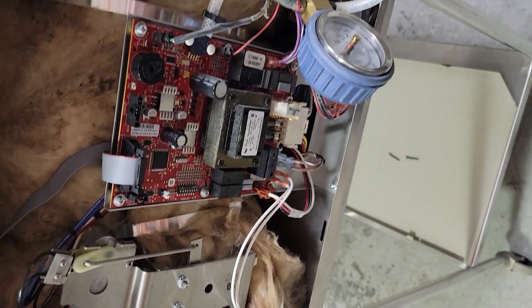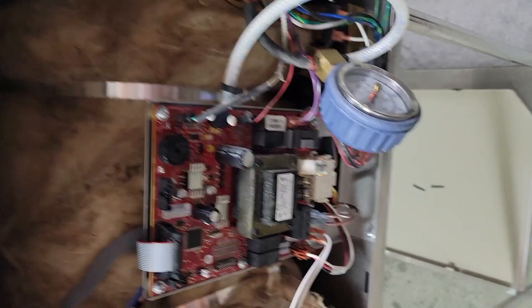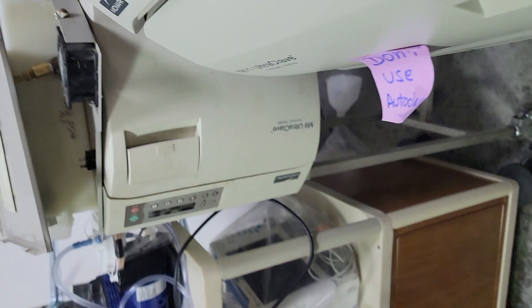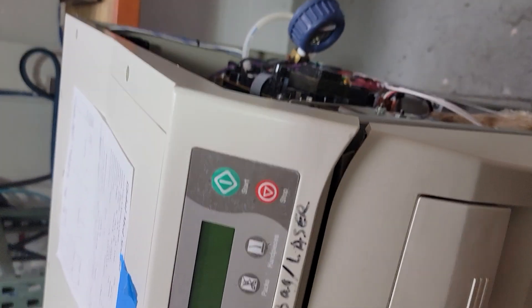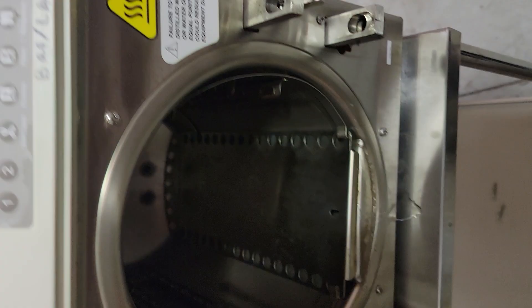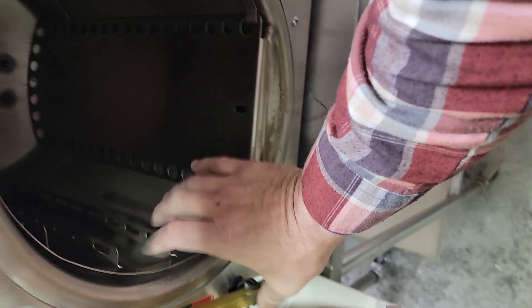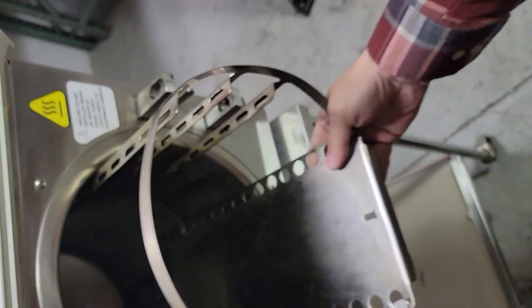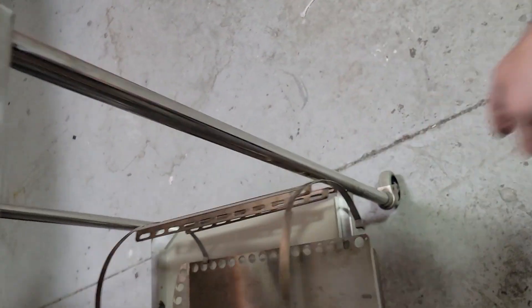On the Mid-Mark, there's not a lot electronically — this is your main board. The other board is your display board, and you'll see visual issues up there if that's a problem. Next up is looking at the chamber to see if we've got any issues. Clips are okay — pull the whole rack out. A little dirty, but otherwise looks fine, no issues in here.